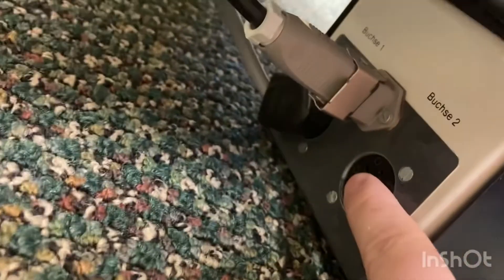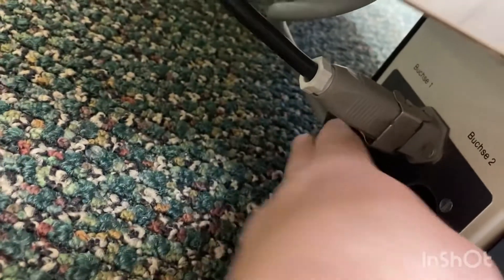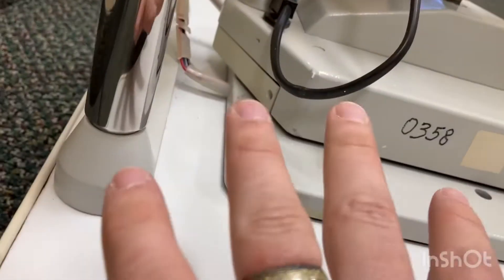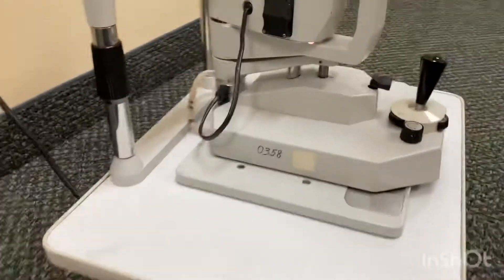This extra open one doesn't get anything. These are equivalent — it's like power one and power two. They're the same openings but you only need one of them, either one. So we just use the more inside one that goes up through the base plate into the slit lamp stuff.